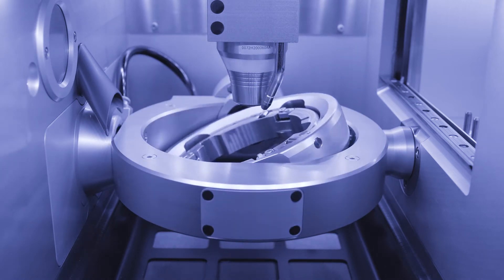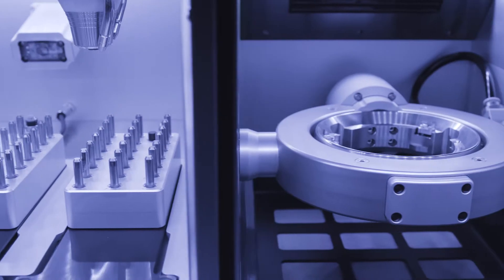This special orbit can be installed in either one or both milling chambers of the M2 milling units and provides a special degree of flexibility and efficiency.